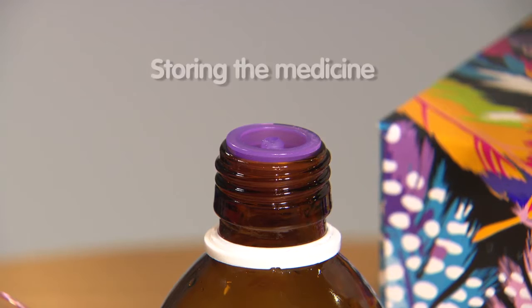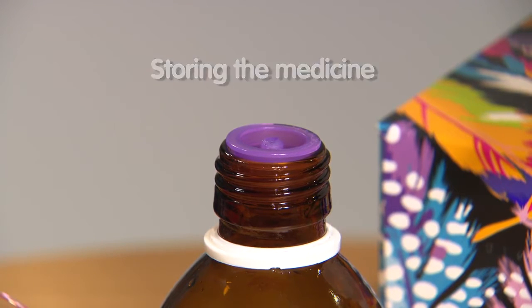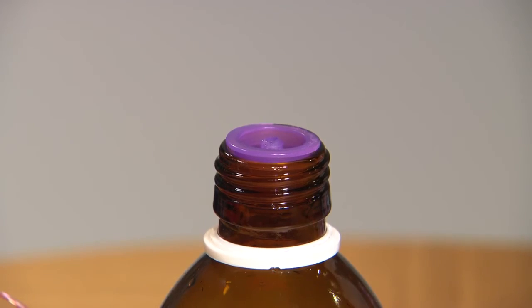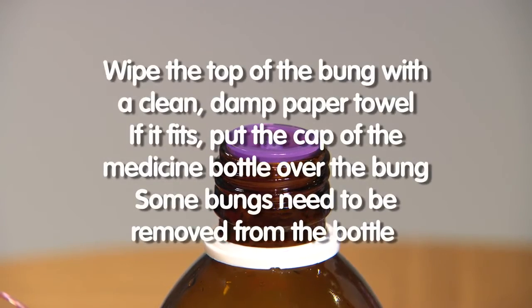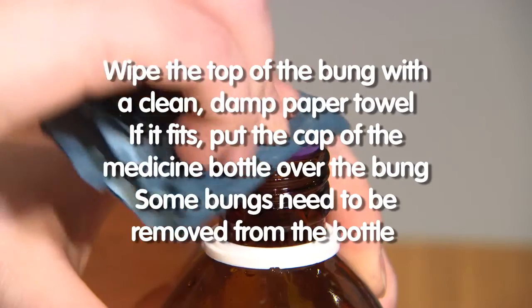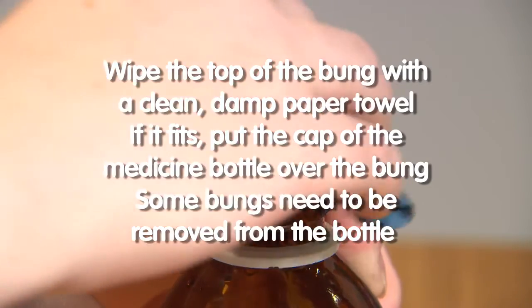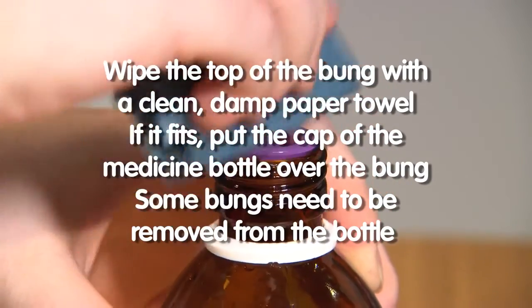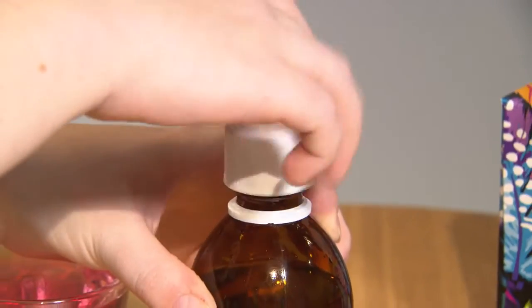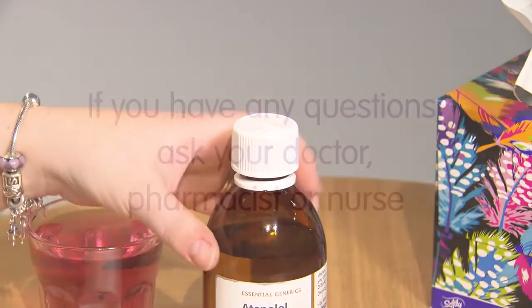If the medicine bottle has a rubber bung, you can usually keep it in the bottle all the time and put the cap over it between doses to keep it clean. You just need to wipe the top of the bung with a damp paper towel each time after you've given the medicine. Some bungs need to be removed from the bottle and washed before and after each use, but you can check this with your pharmacist.